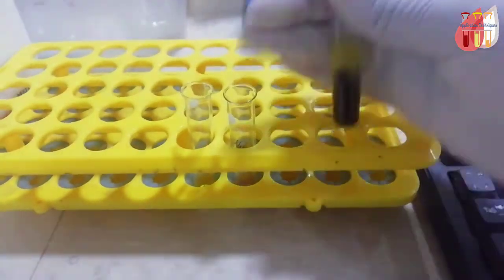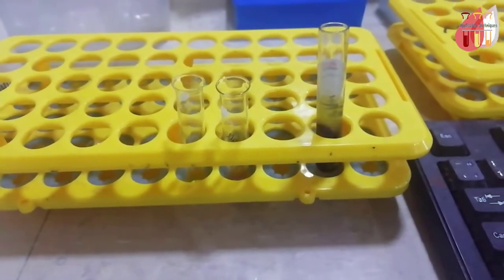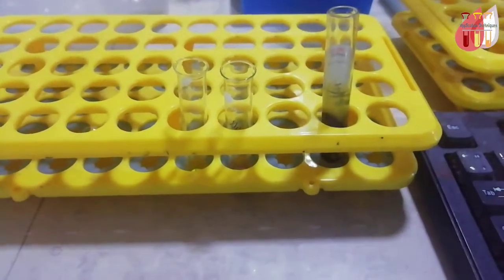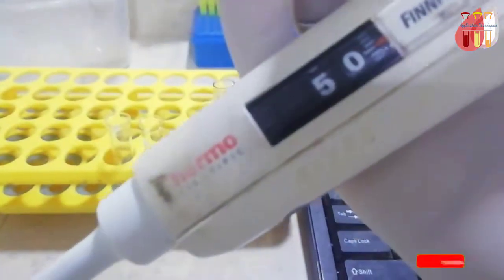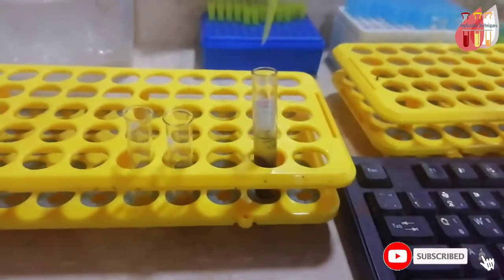For serum, collect the sample in a serum separator tube or red tube and add 50 microliters.